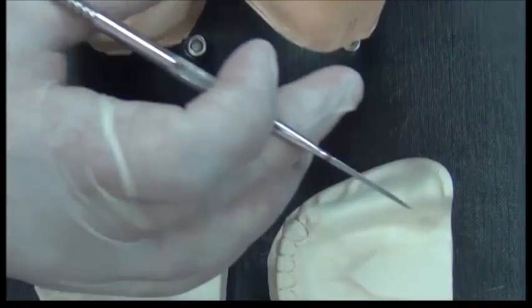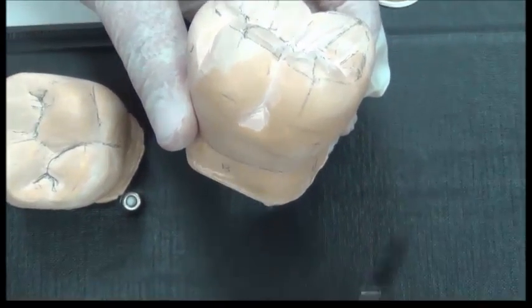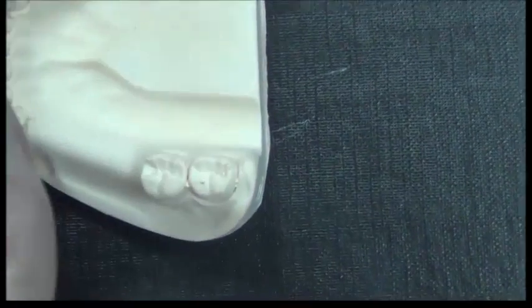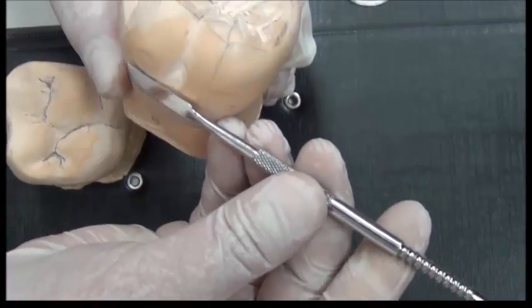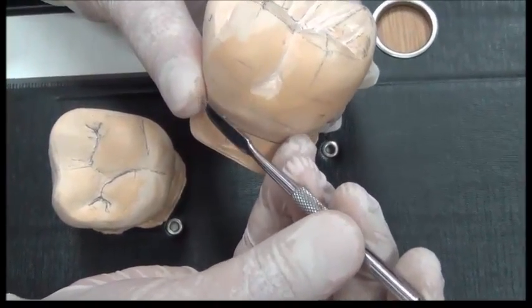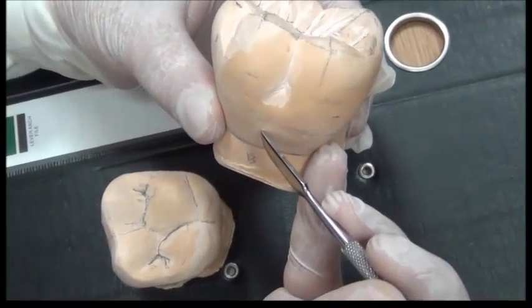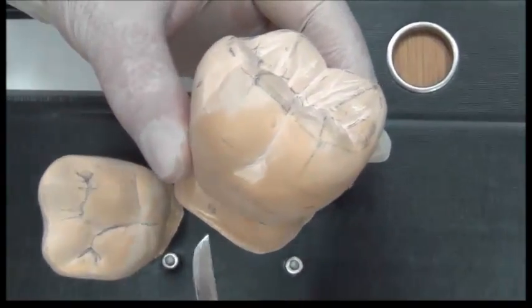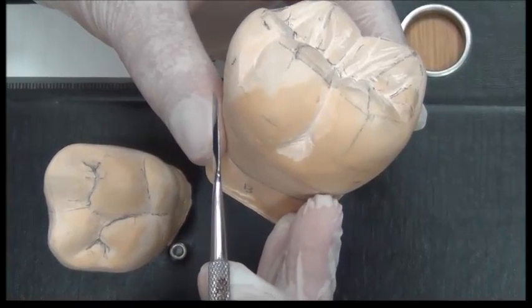So if I go to an enlarged tooth, this is what we call an abutment. This is the tooth I'm going to talk about, which is adjacent to the edentulous area. Suppose that we have the edentulous area on this side, and this will be our abutment, and we need to add a clasp here. So go back to the question, do I end my clasp here, here, here? Do I need to put it more inside? Could I end a clasp here? The decision where to end a clasp has many factors determining it, including aesthetics, including the health of the tissue, and including utilizing features of the tooth.